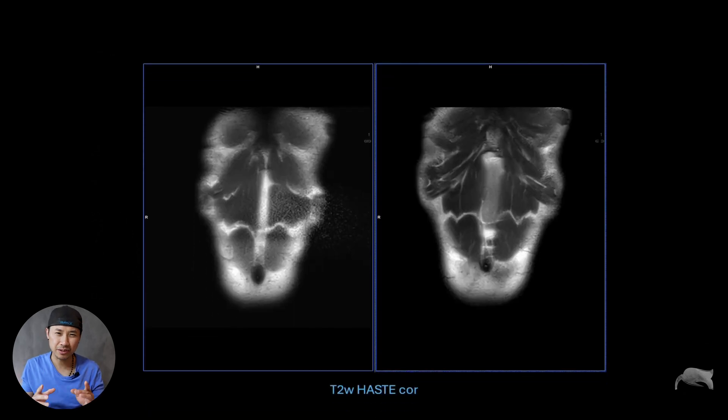To spot the artifacts right here it's very difficult, but you can see artifacts right there. This is the anterior part of the body 18 coil, and there's a small element which is broken — that's why we got this kind of artifact. Whenever you get a new one, you can see that the artifact is gone. So quality assurance is definitely something you need to do.